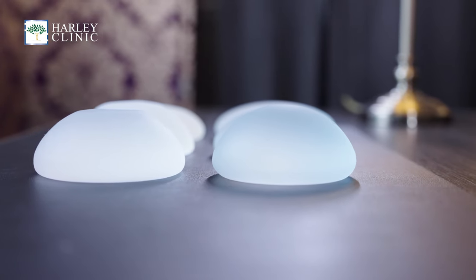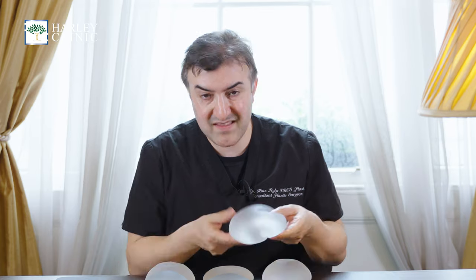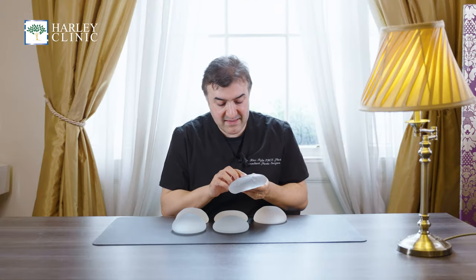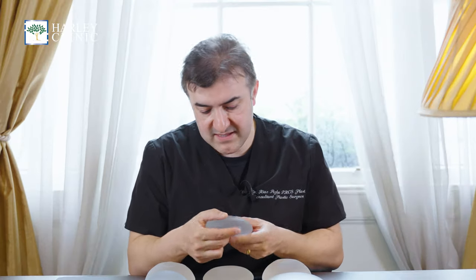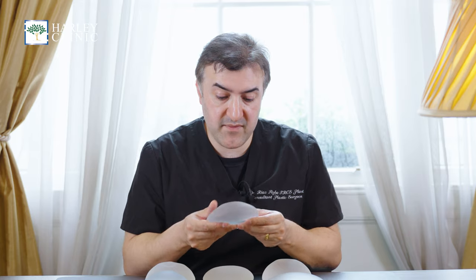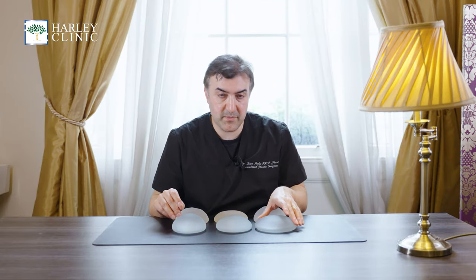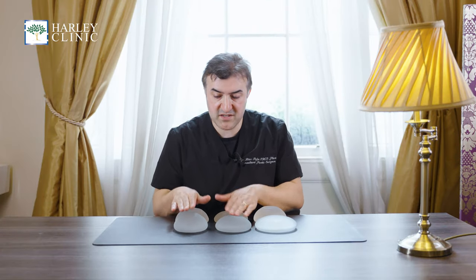Size is important. Of these three implants, the biggest one is actually this one here, which is the lowest profile. It's 400cc, and that's because it's big — it has a 13.5 centimetre base width, whereas this is much smaller at 11.5 centimetres. So the overall cc's of this is bigger and it's for a bigger chest than this one. And where you've got two implants which are very similar base width, you've got different projections — that's how much you want the implant to come out — and that's really a shape issue.